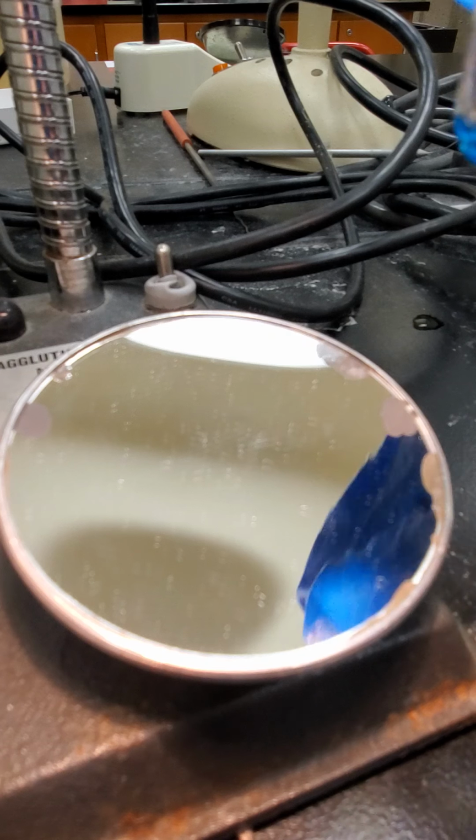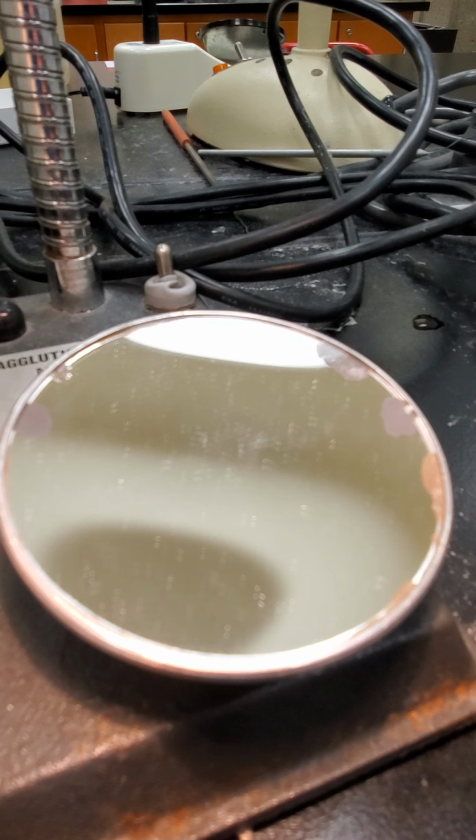Okay, so these next tubes, and I'm going to rock them all together, these are for our A negative unit that ends in 8596.